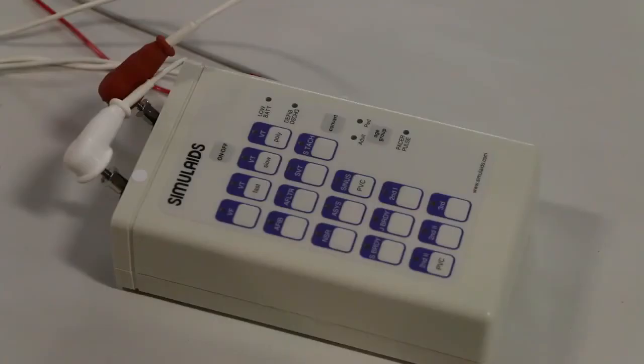Next, the controls. You have a range of cardiac rhythms to select from.